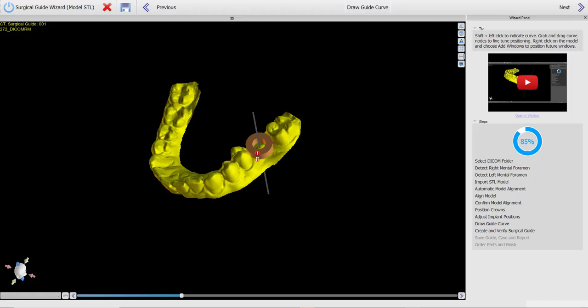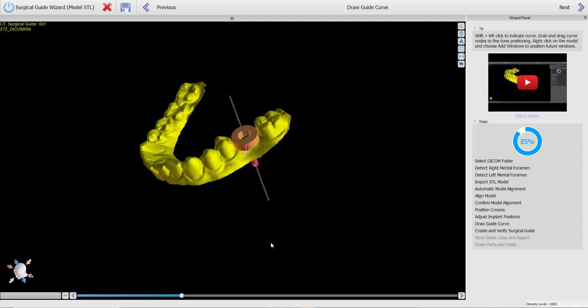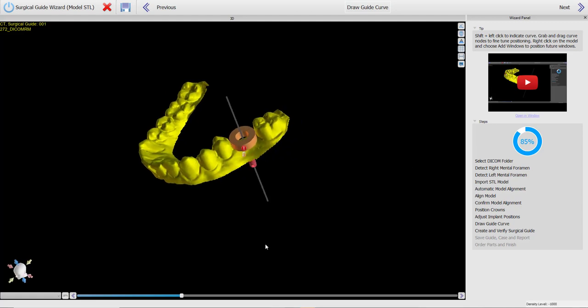In the previous release, we showed the user the undercut model with the undercuts removed. This added a bit of confusion. So we have updated the functionality. And once again, we do not show the undercut model. Simply we remove the undercuts behind the scene, we show the user the original model, and then we show the user the surgical guide on the same original model. And we do not show the model with the undercuts removed unless you're in advanced mode and you specifically check a checkbox asking to create the undercut model.